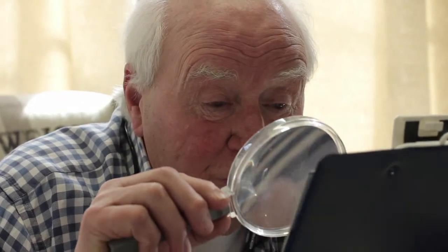According to the size of the print that you're going to read and the condition of your eyes, these handheld magnifiers — you must move them backwards and forwards until you bring the print into focus.